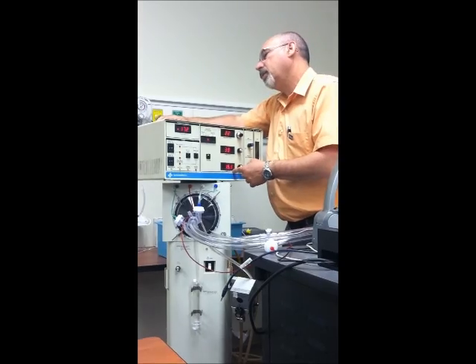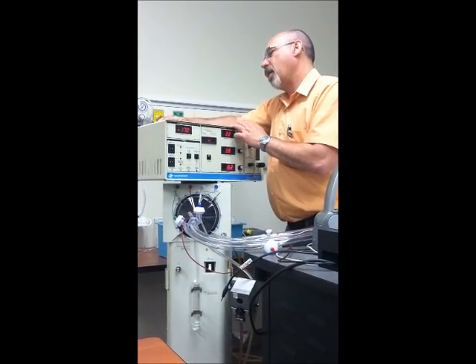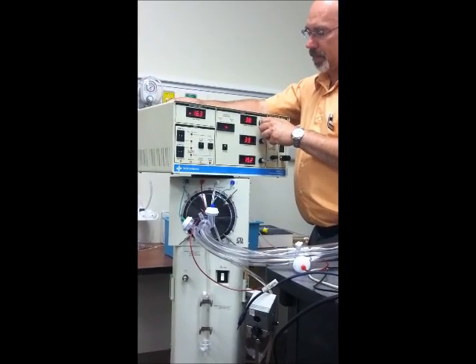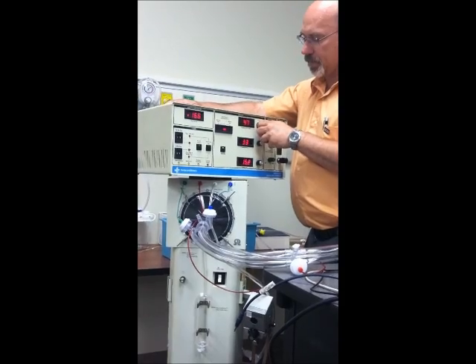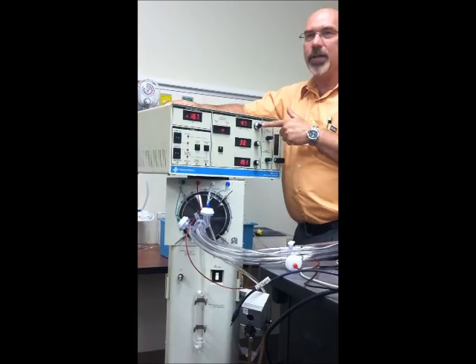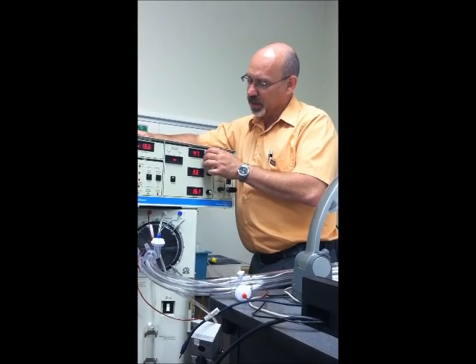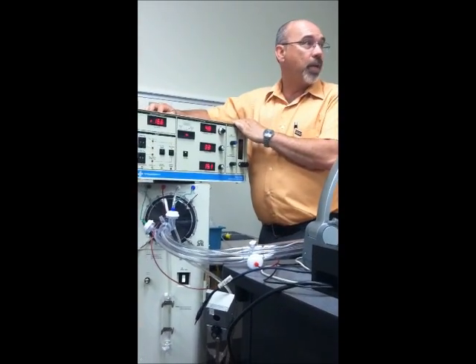Frequency to 15. I time to 33, start the oscillator. Already good. Now, set power to 6. That's this little knob up here, and you can barely read it where I'm standing. Okay, so the numbers are really, really tiny. We'll lock it, and we need to center the piston.